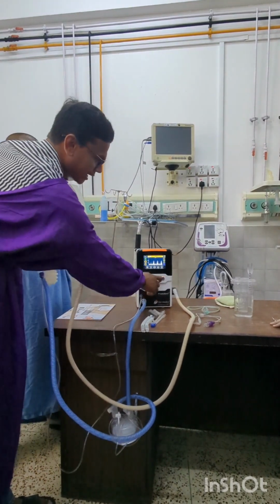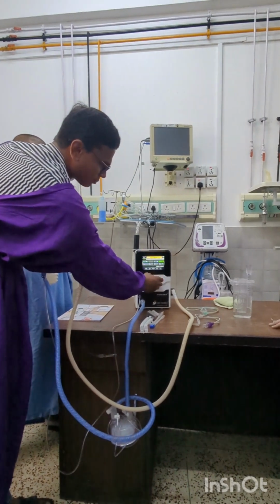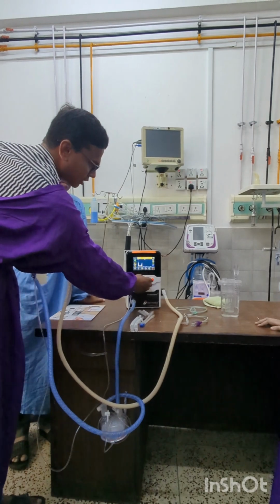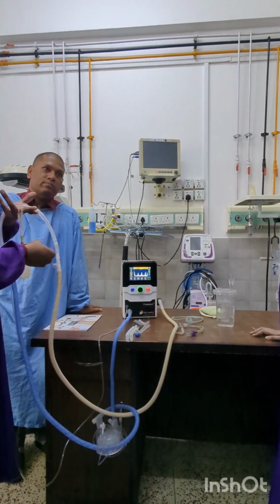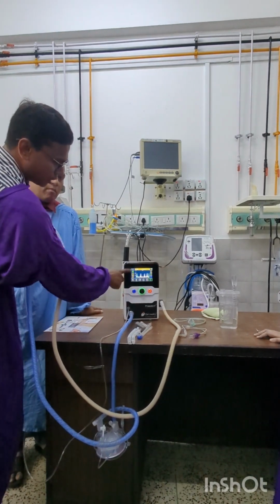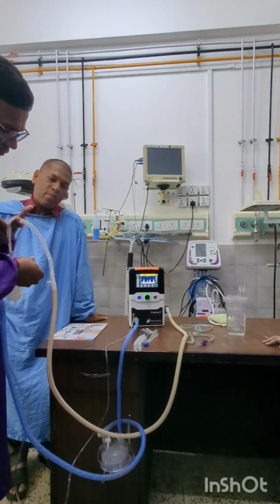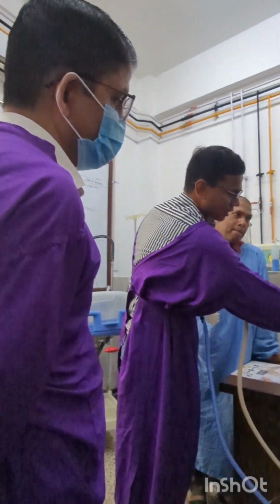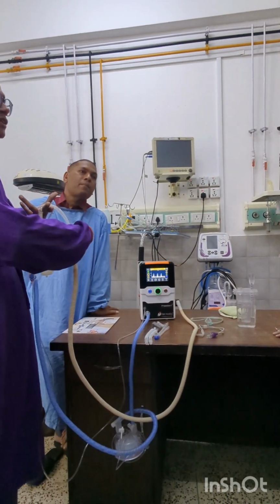So this is NIPPV, and one more is NISPPV. That is a synchronized ventilation where you can also set the trigger sensitivity. Even with the leak, you can see I will start the leak right now. Your PIP and PEEP of 18 and 5 is delivered. If I create a leak here, you can see the pressure drop, and it has compensated, so your pressure delivery is still the same even with the leak.